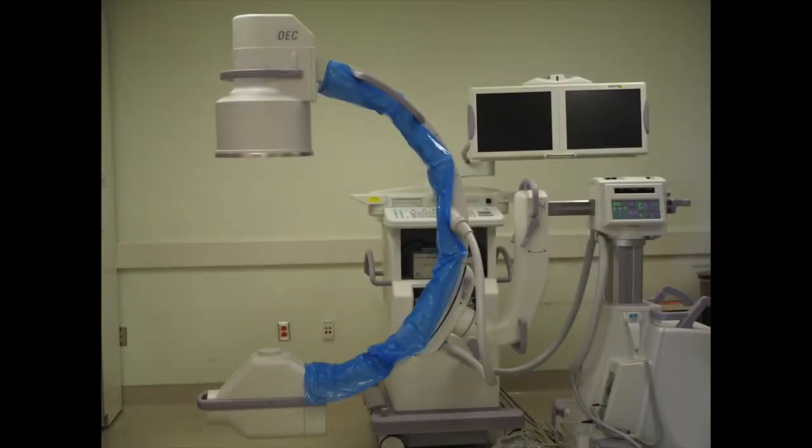Here is the C-arm used in our bronchoscopy suite. We will review the key components of all fluoroscopes, though there is some variability between C-arms.